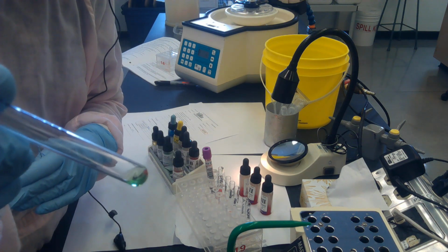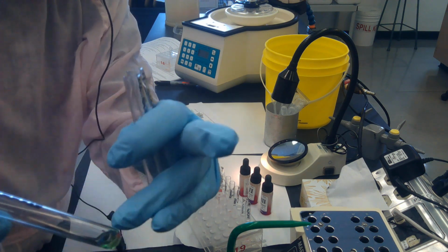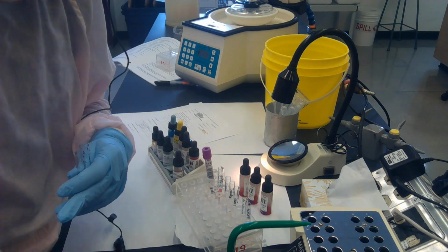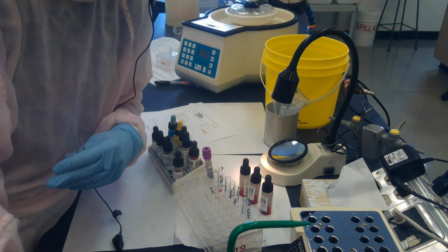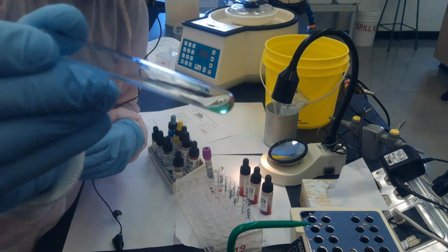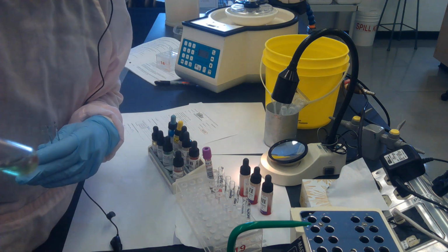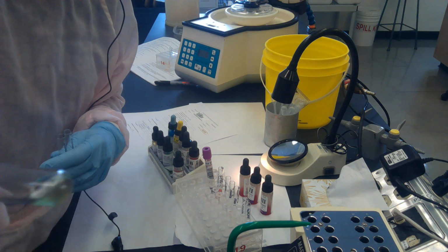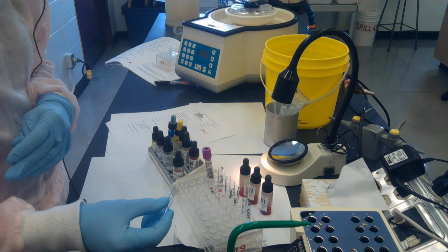I don't see hemolysis in the liquid portion of the tube. That's the first check that I do. I put the button up, so the button is facing my face. Okay, so the button's up here, and I'm going to waggle. It starts out as kind of a back and forth motion like this to try to dislodge the button, and then it becomes more of a shake.